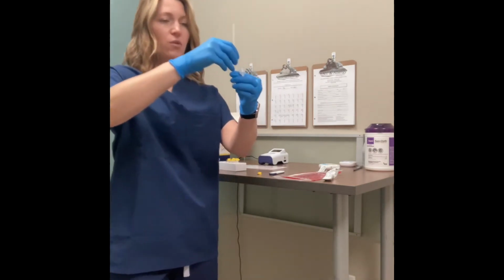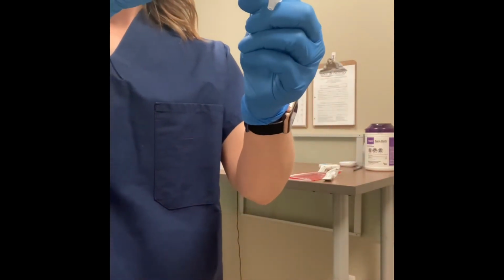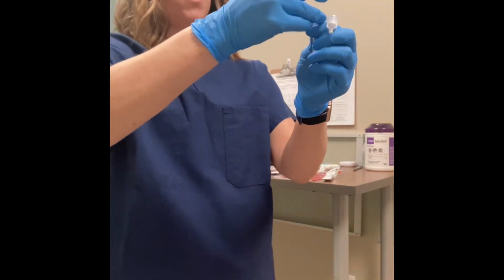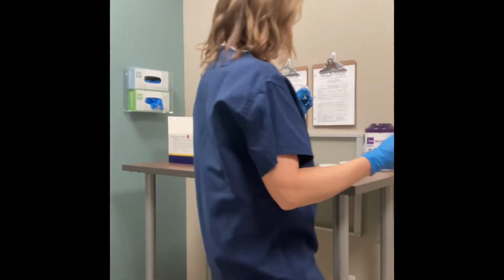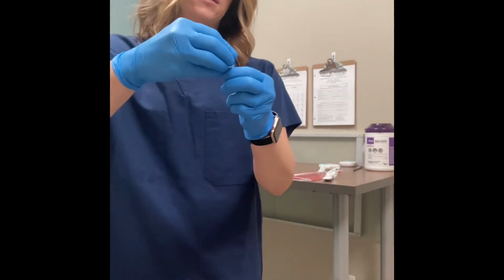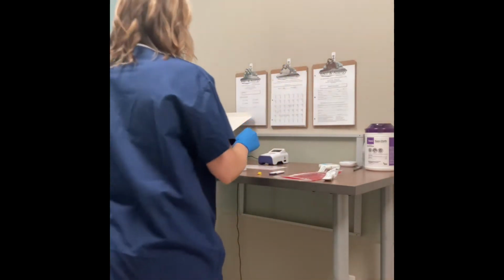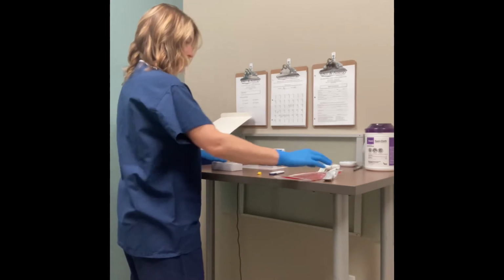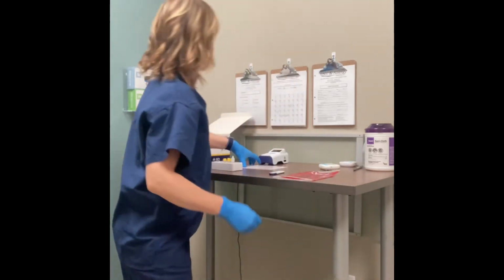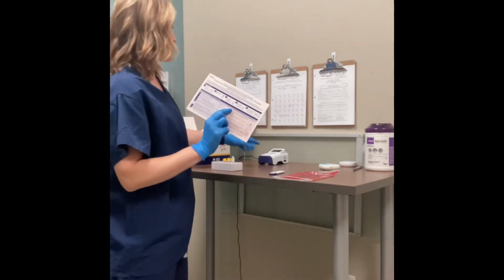And then once again, when you remove the swab, use the ribbed areas on the side of the tube to squeeze and twirl and get any remaining sample out. Once this swab is processed, it has to go in the biohazard container. After that, click on your filter cap and then your sample is ready for processing. So again, this is where you would stop and go into the pink section, which is the walkaway section.